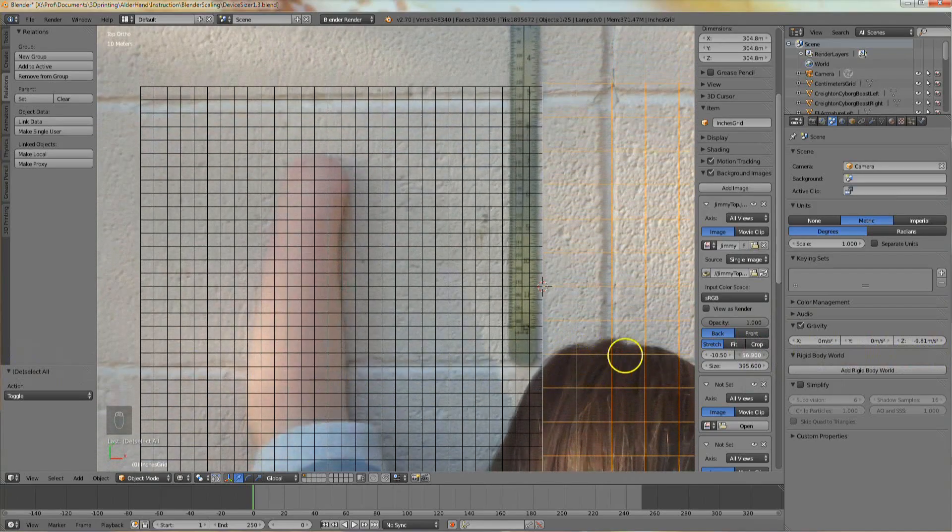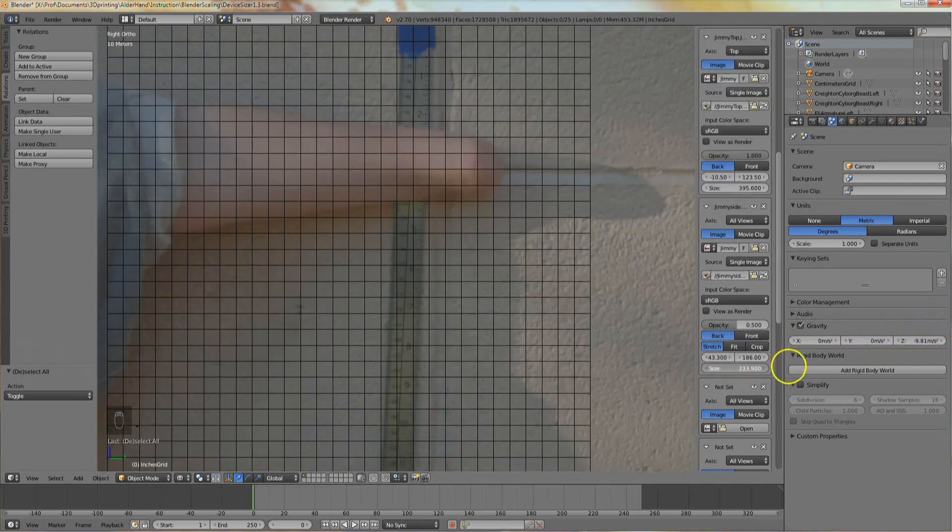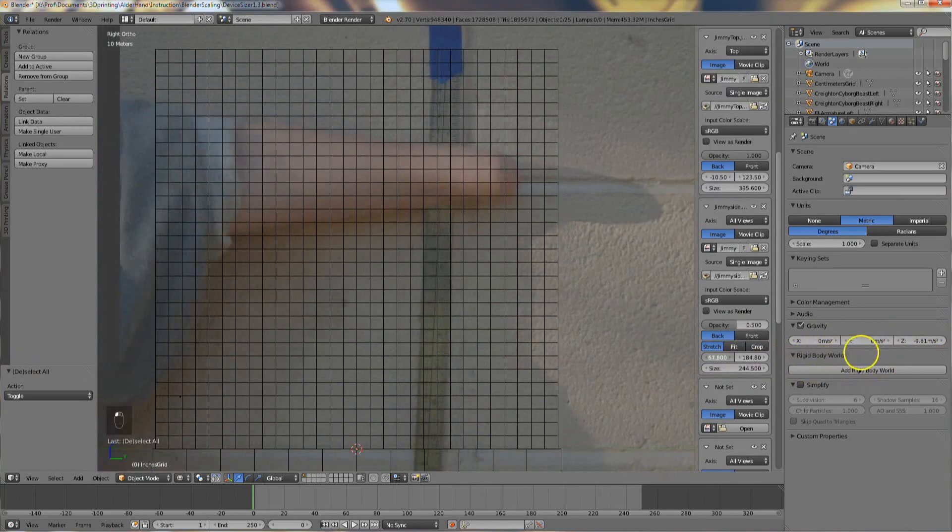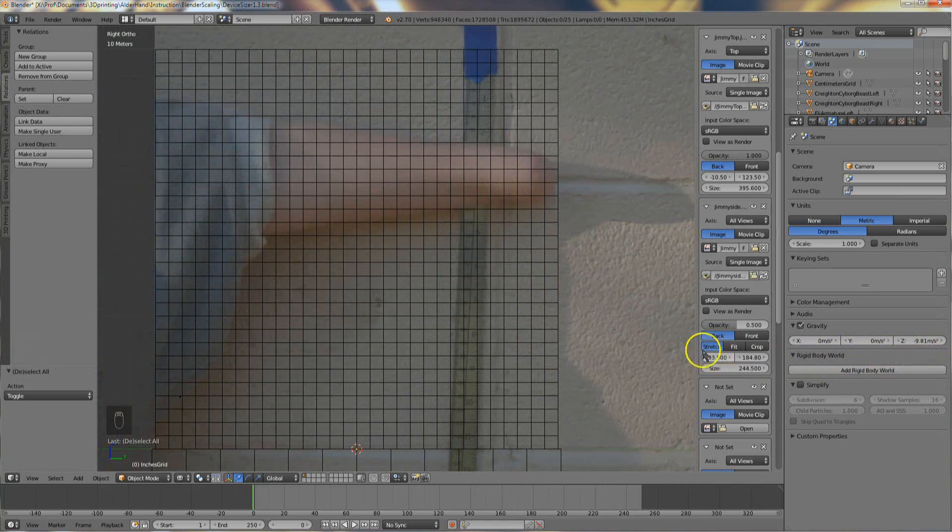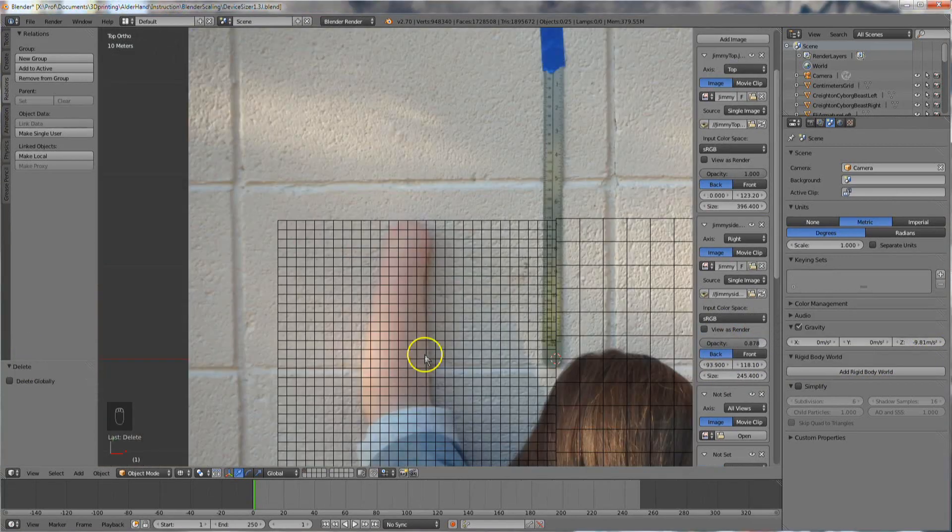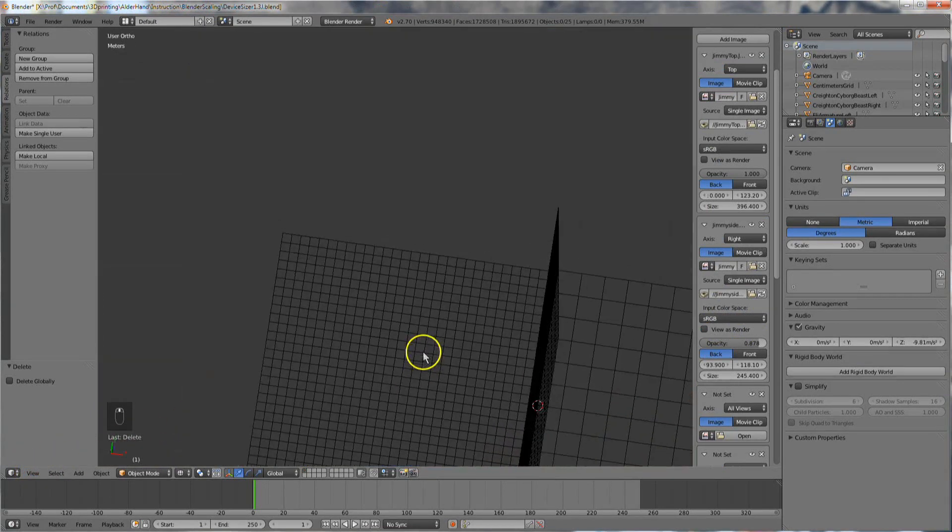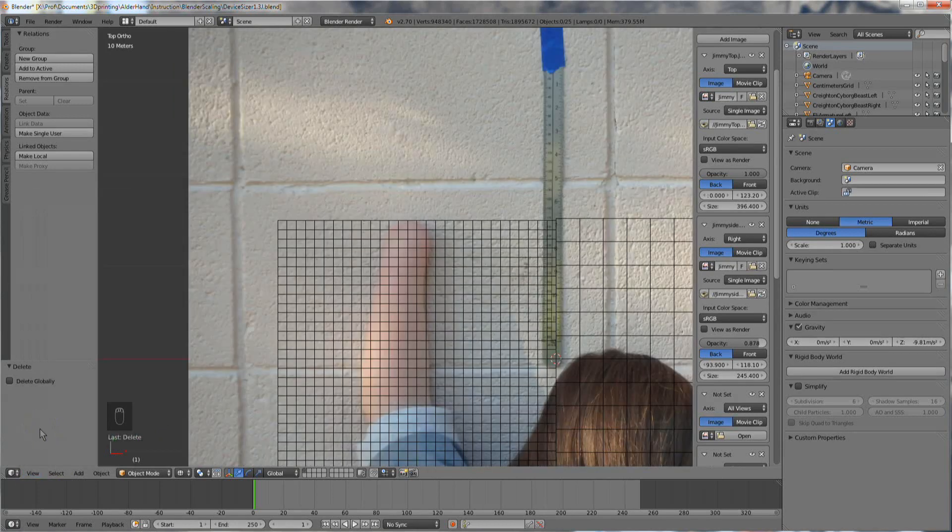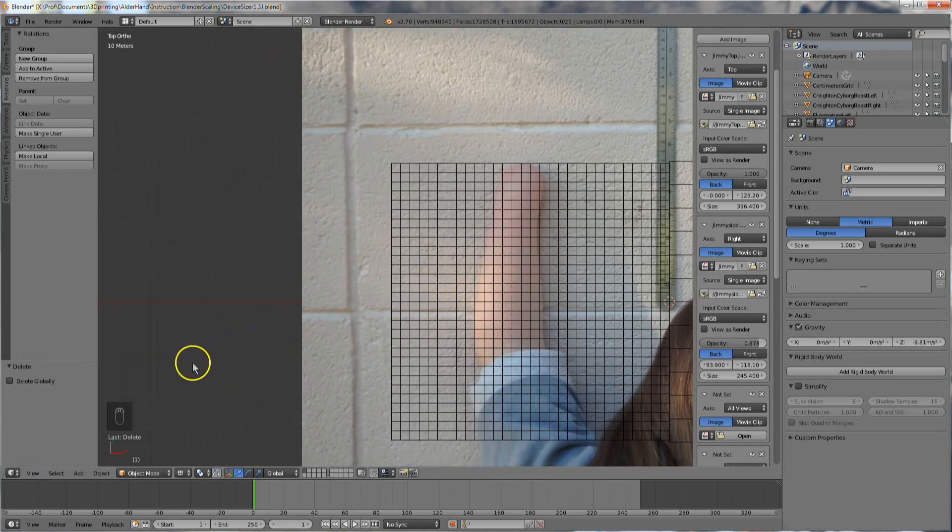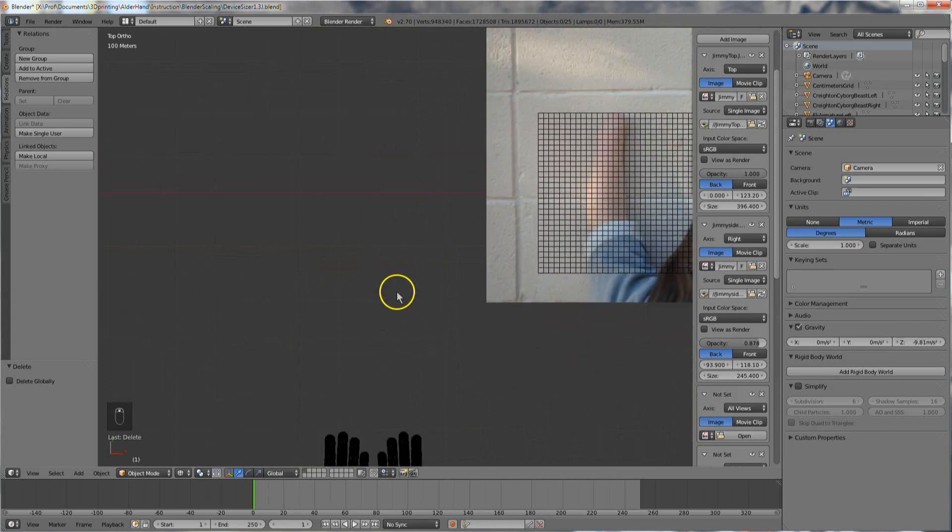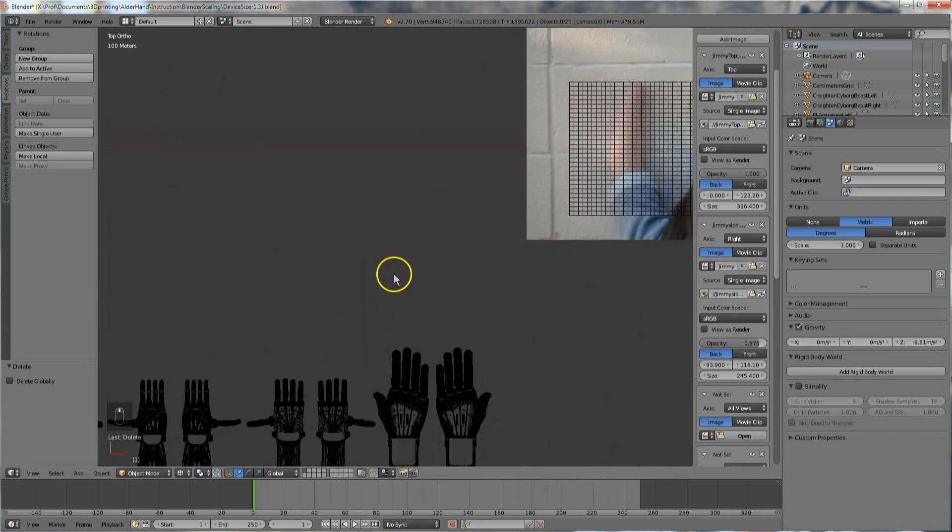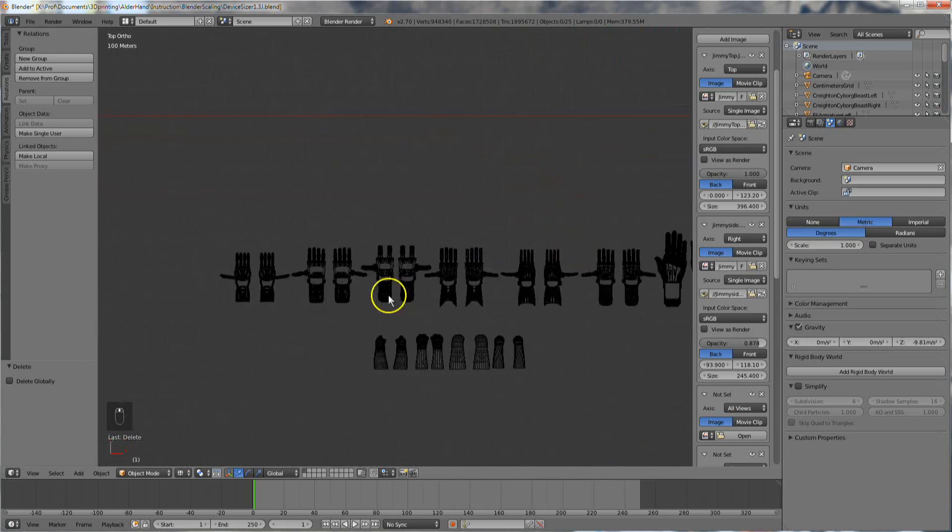At this point, we've imported top and side view photos, scaled those photos, and moved them into position for a virtual fitting. Let's have a look at some designs. Look down in this lower left-hand corner to see the keys I'm pressing. Right now we're in top view. Use Shift and middle mouse button to pan and the mouse wheel to zoom. If you're using a Mac, you can look up the keys for pan and zoom, or just plug in a three-button mouse.